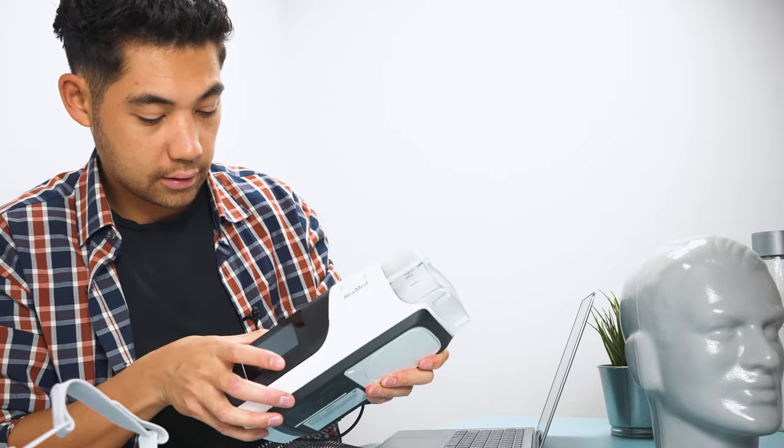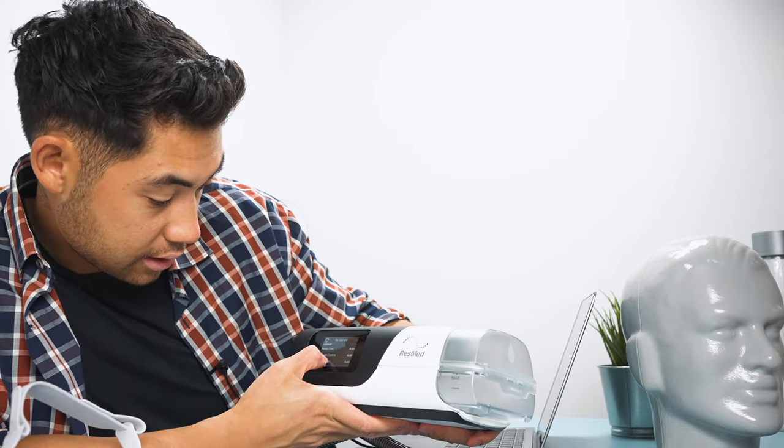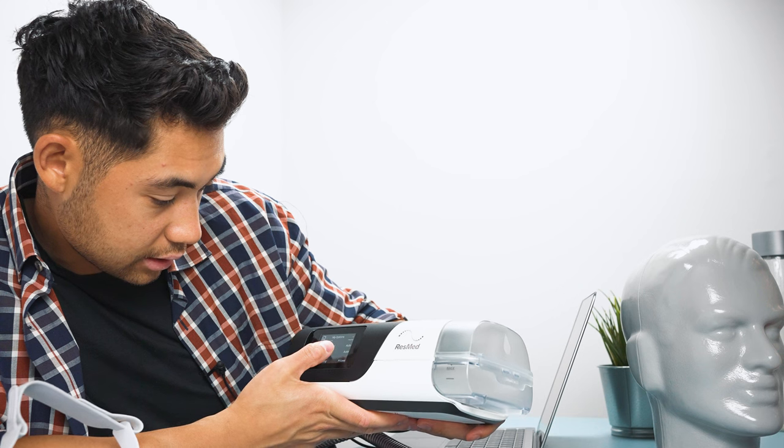So you want to run a mask pressure test to see if there's any leaking. If you have a new mask, if you're changing pressures, or just in general, you may like once a month to make sure everything's in good function. So to do that, let's tap the screen here. And we're going to my options.